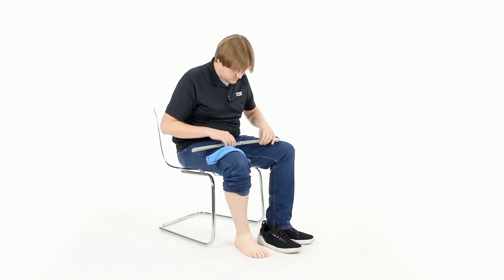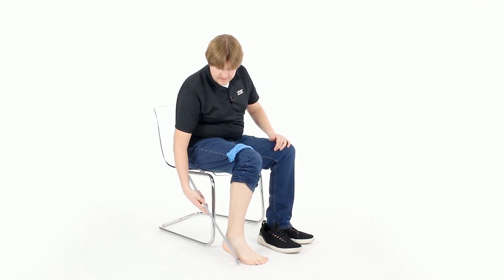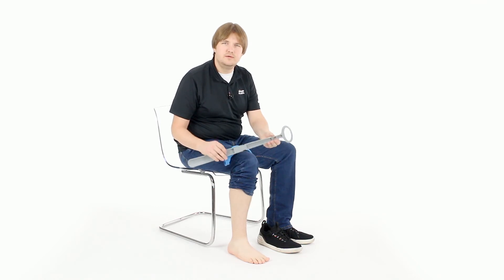It's as simple as that. Just get the hook in, get it down past your heel, push it off all the way. Very easy. Thanks so much for watching. Give the video a thumbs up if it's been helpful.